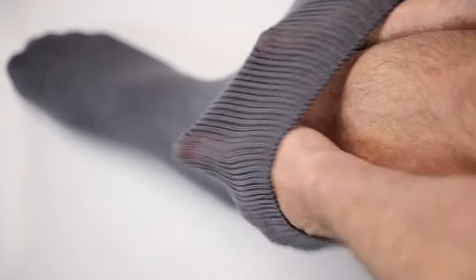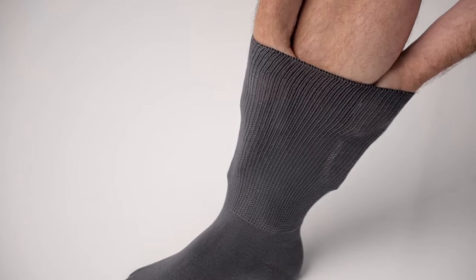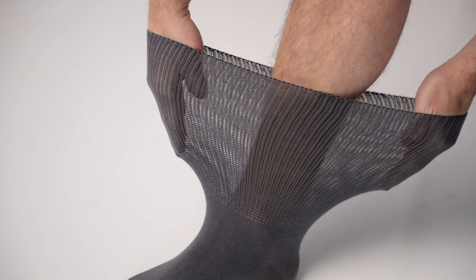The socks are made on highly specialized machines in the UK and can stretch to a leg circumference of 76 centimetres.